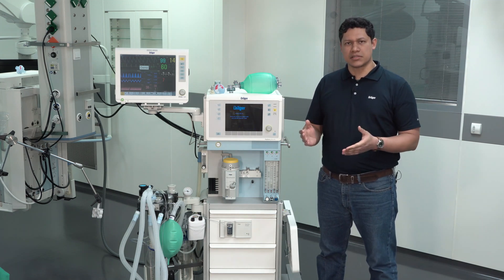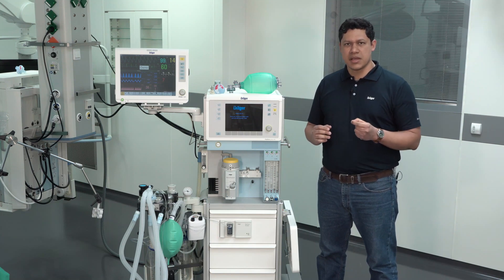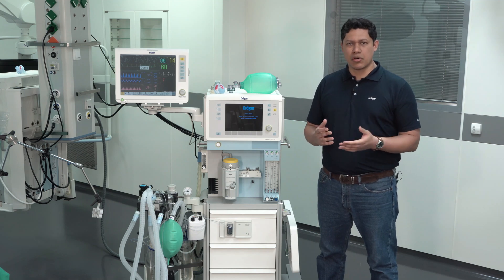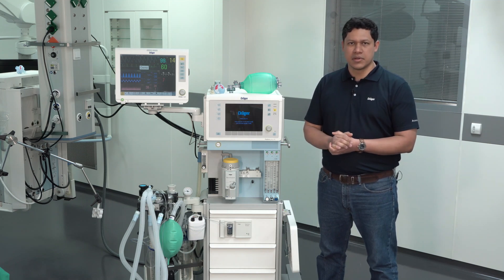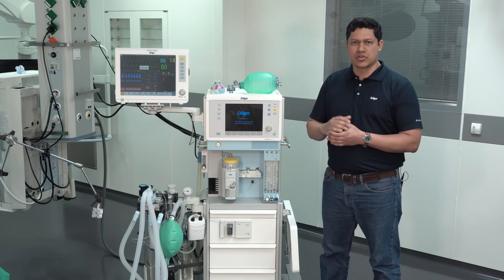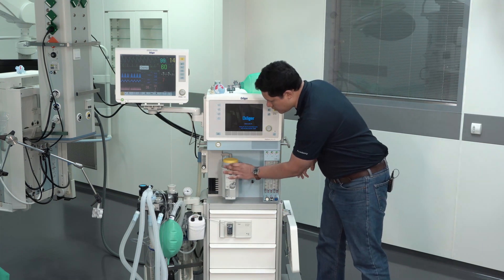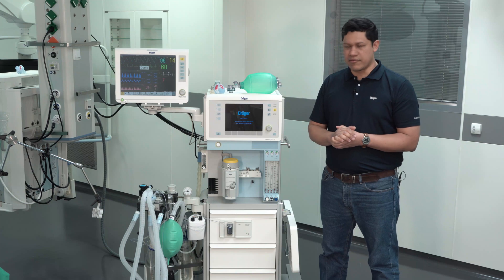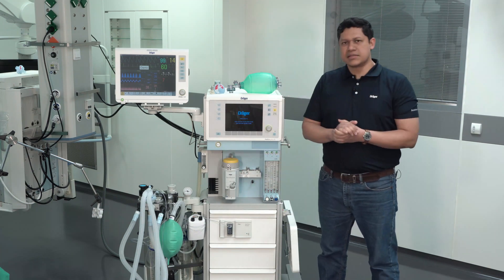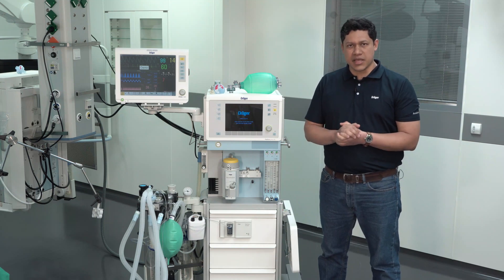Remove all vaporizers from the anesthesia device. The small amount of anesthetic agent might trigger malignant hyperthermia in the patient or in the clinical staff. To do so, press the button and turn the dial to the T transport position. Then turn the lever and take the vaporizer out. Please be aware that the vaporizer is heavy.